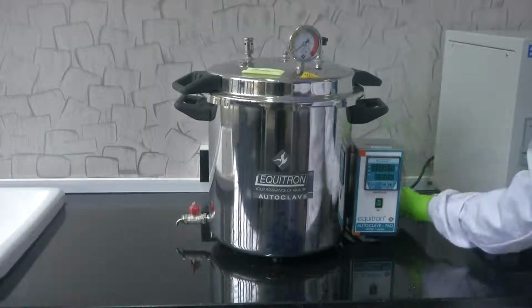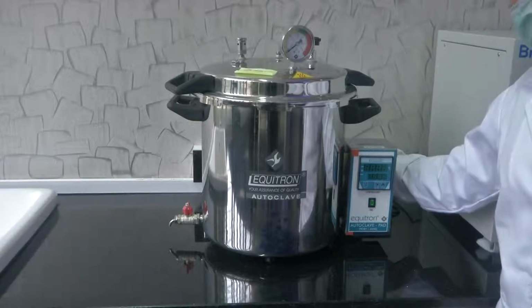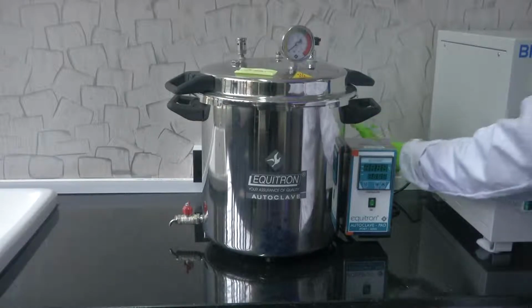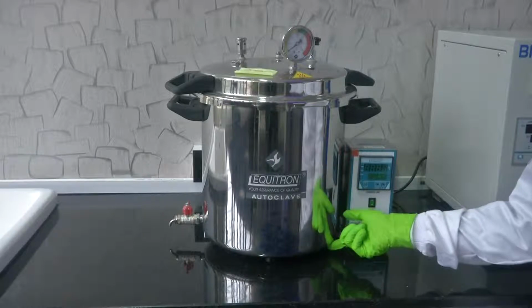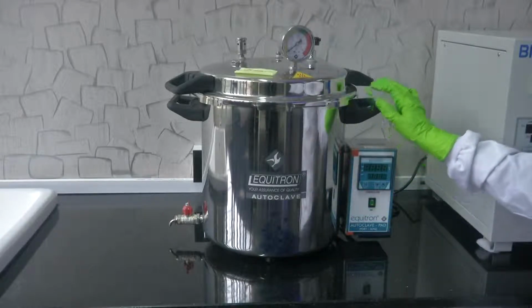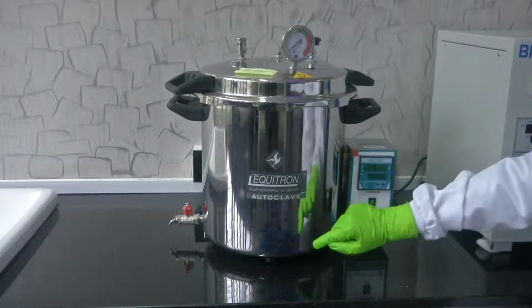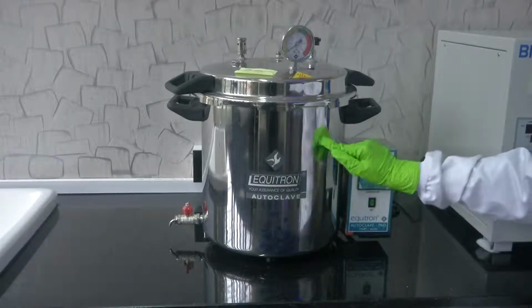To begin with, there is a cable which can be connected to the power cord. We are using the power to heat the coils which are beneath. After the power cable has been connected, the main purpose is to use the heater, and once it is heated, the water is converted into steam.